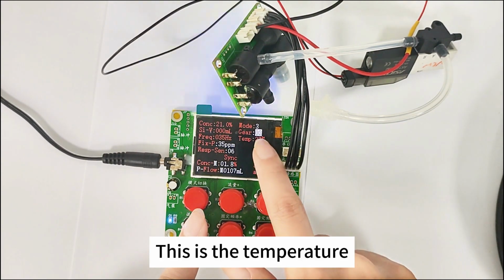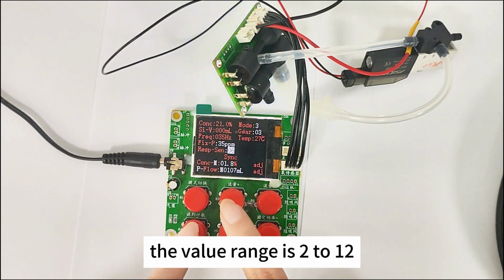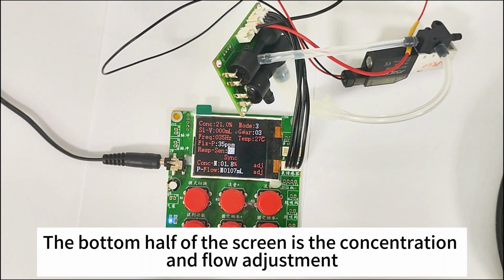This is the temperature, which is currently 27 degrees Celsius. This is the sensitivity. The value range is 2 to 12. The smaller the value, the higher the sensitivity. The bottom half of the screen is the concentration and flow adjustment.